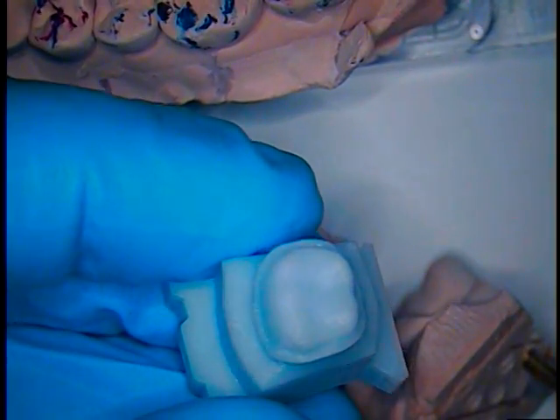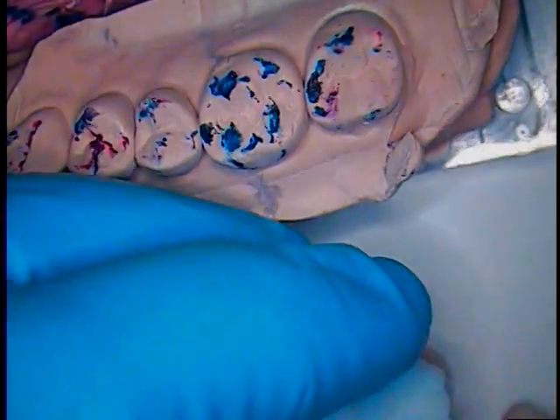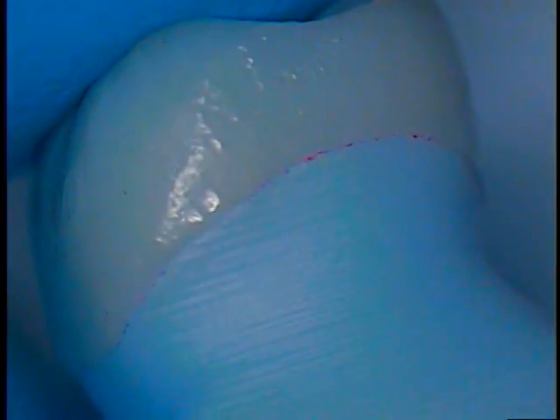and so a virtual die is made. Some other people would probably call it a stereolith model, possibly. We'll call it a computer model. Anyway, this is the die work. Now we're going to place the final porcelain crown on that, and you're going to notice that it is basically flawless throughout. And you can blow that up even higher. Just a precise fit that we have.